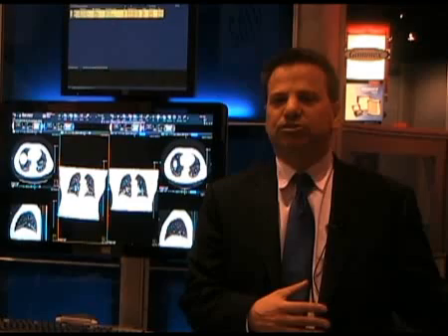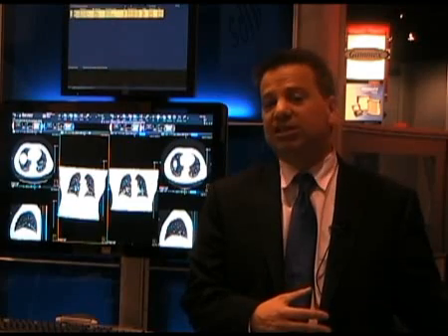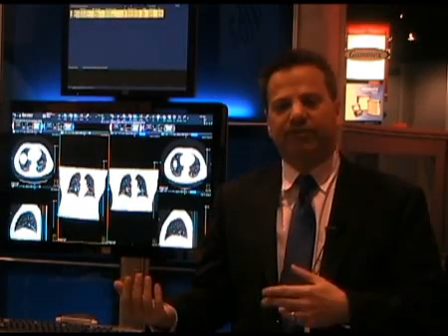If they want to look at it differently, they have to ask the technologist to reformat the data at the modality, probably interrupting the technologist's scanning of a different patient. They have to wait for the results and then review it.